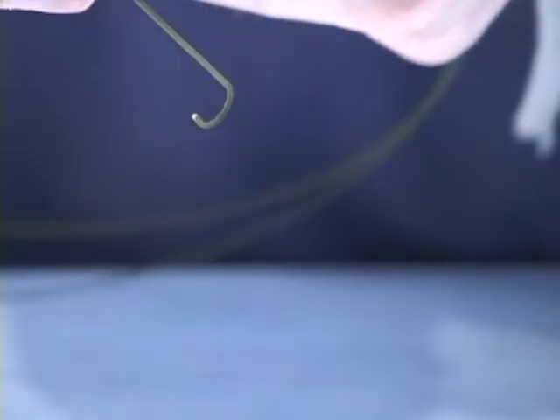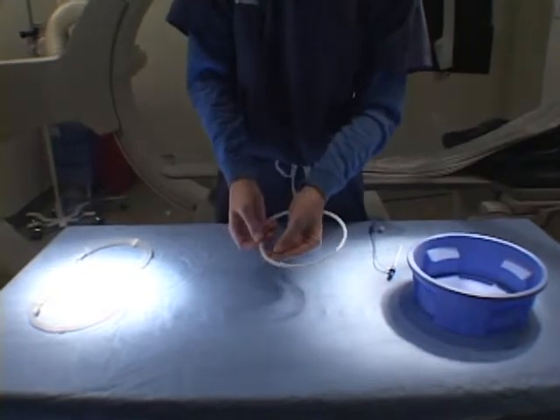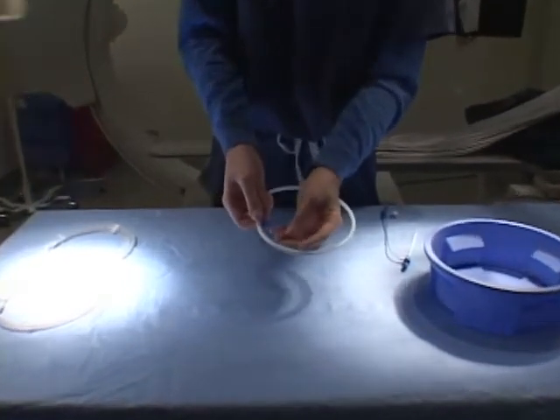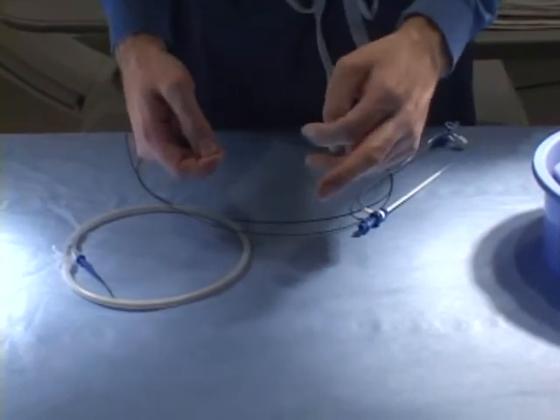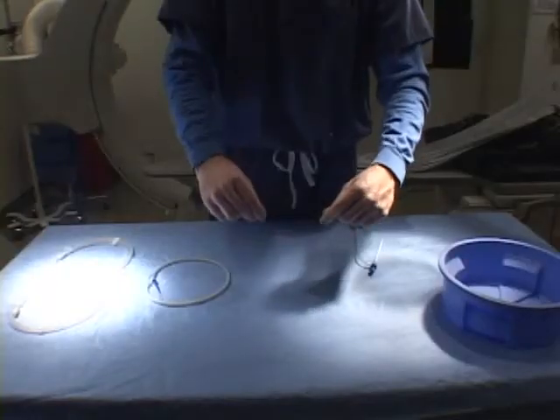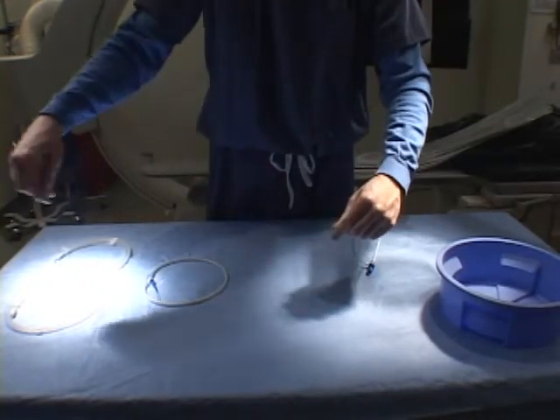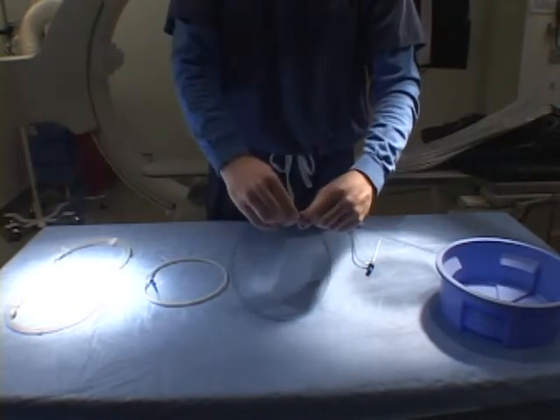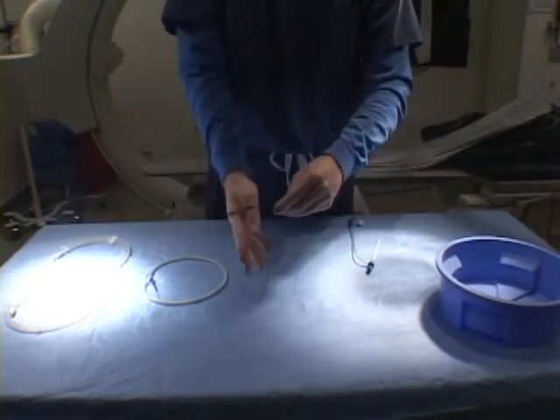These guide wires come in 0.035, 0.022, and even fine angioplasty type guide wires in 0.018 inches. They are flexible at the tip which enters the body and stiff at the other end. Exchange guide wires come in 300 centimeter lengths, which permits the operator to position the guide wire in the distal part of the heart or arteries and then exchange for different catheters.